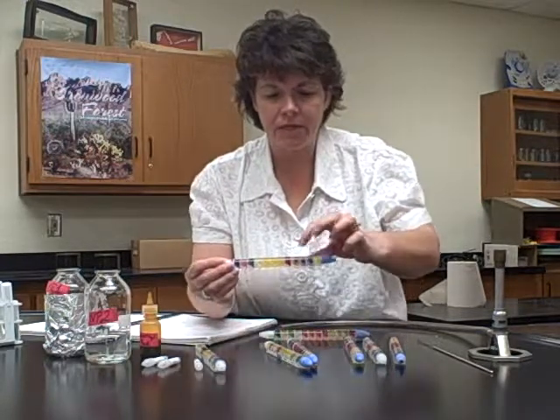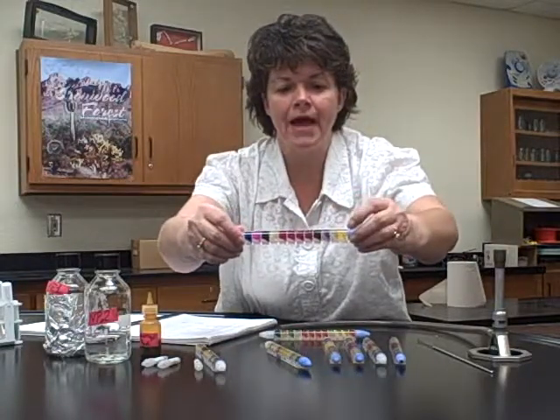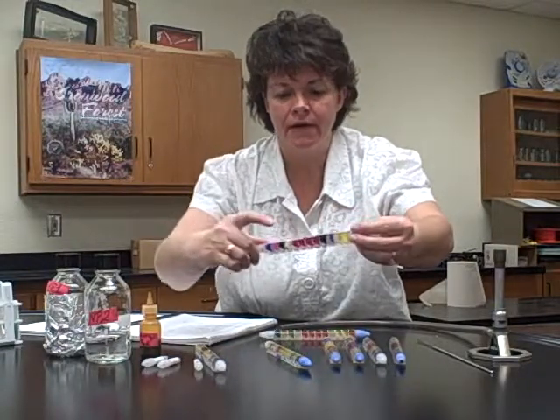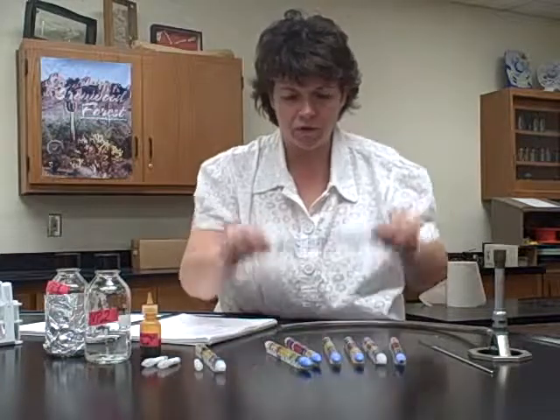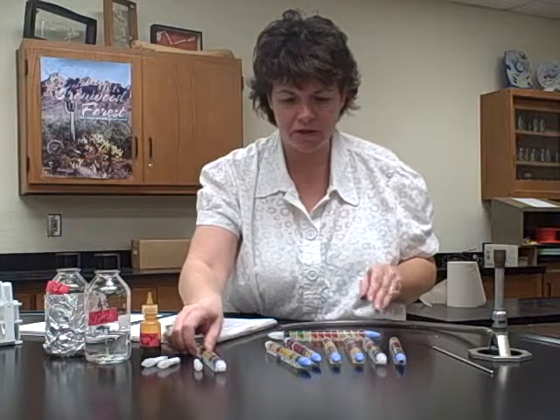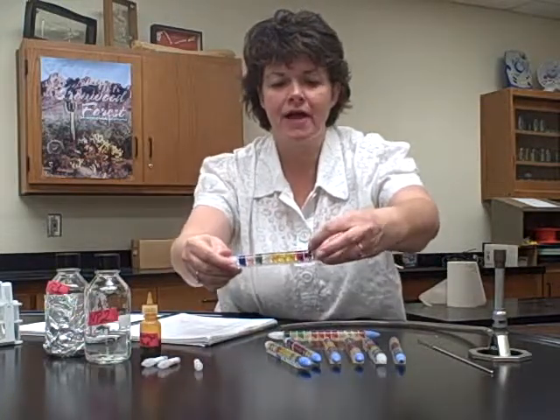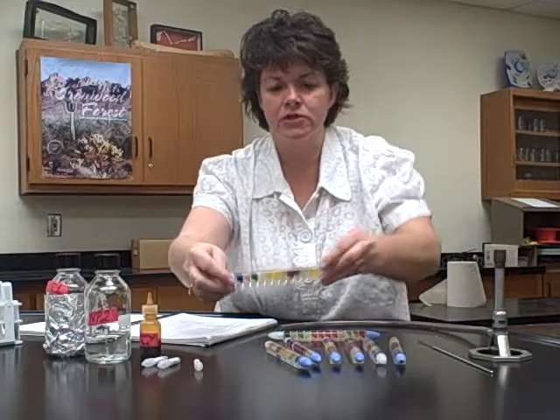And like in this compartment here, and also like this one here, you can see the black, and that's the hydrogen sulfide. So we'll compare it to an uninoculated tube. I can see a lot of different results occurring. Like this one has the blue for the citrate, has the black for the hydrogen sulfide.